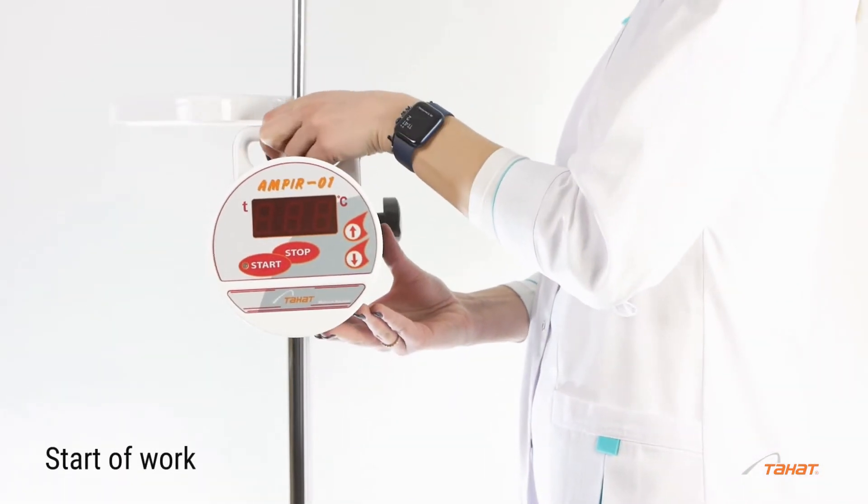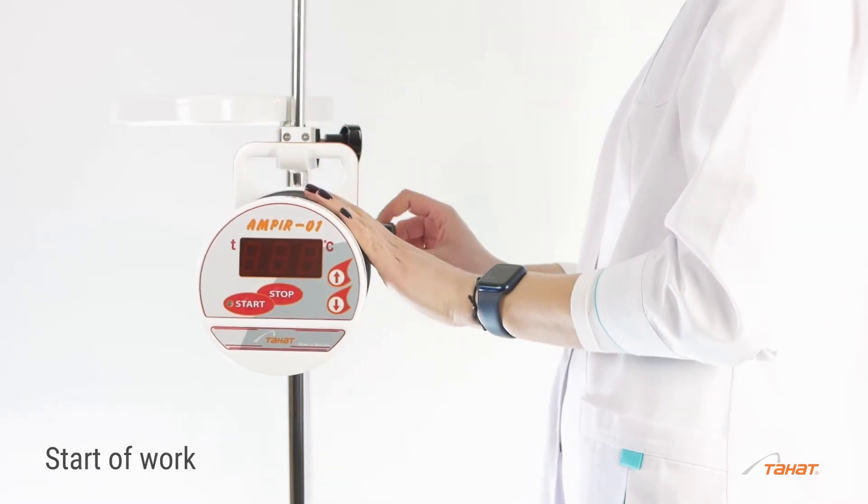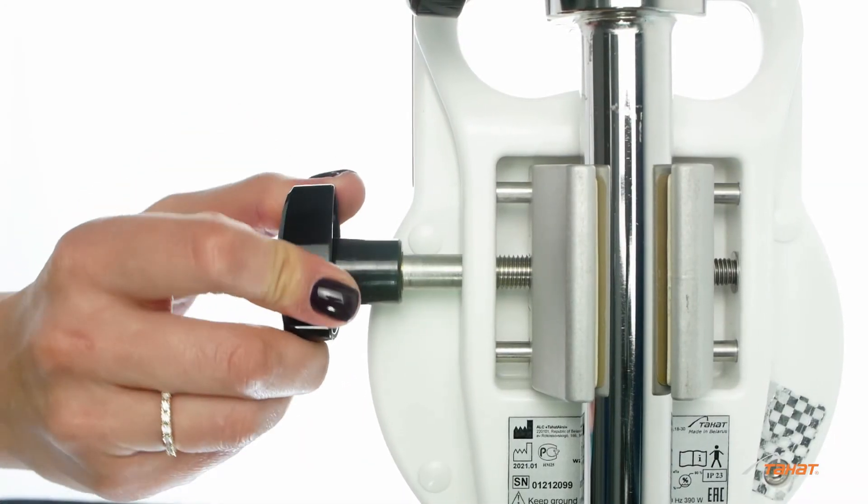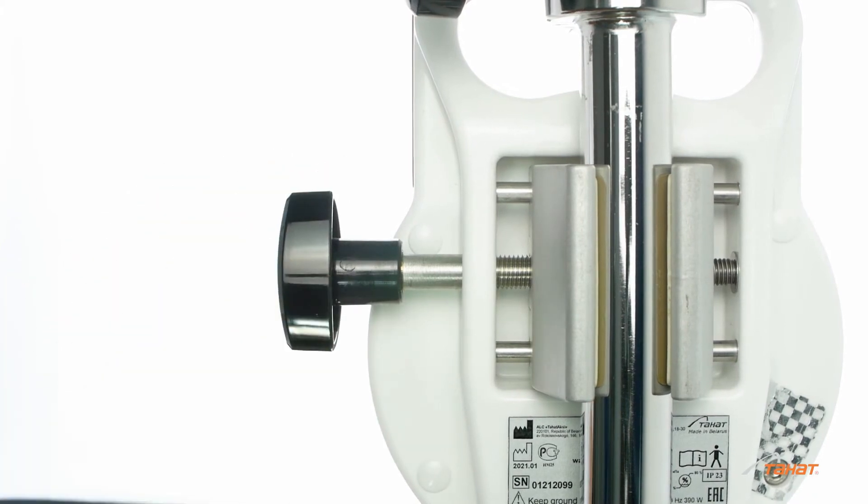Mount fluid warmer on stand. Fix it with a knob. Make sure that the warmer is fixed safely.